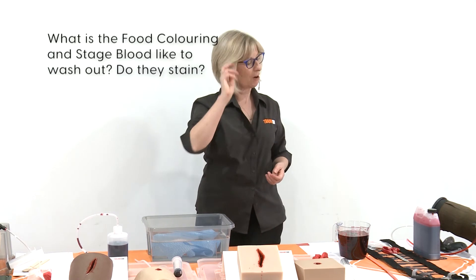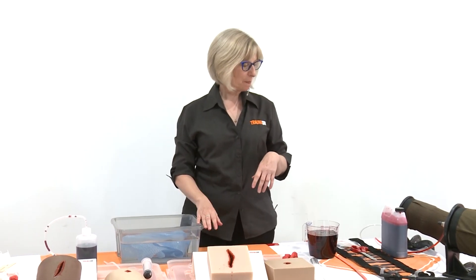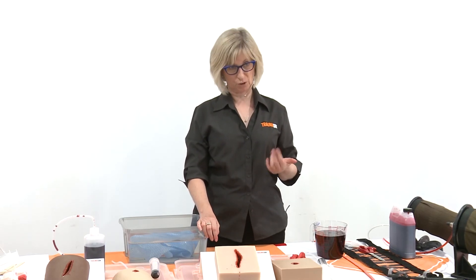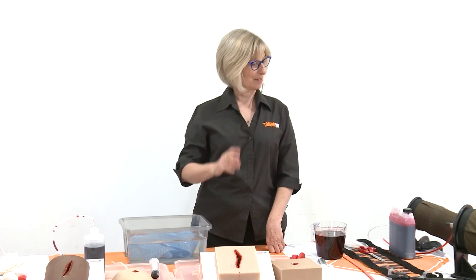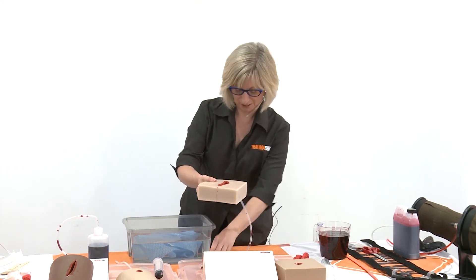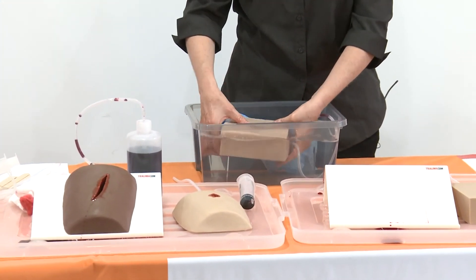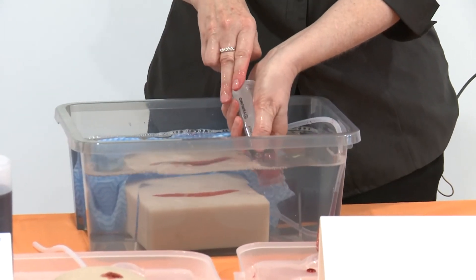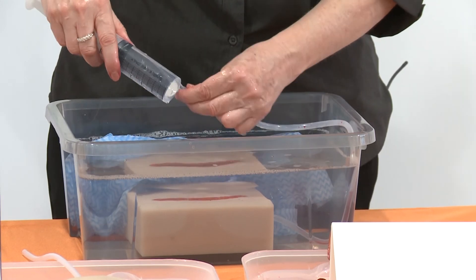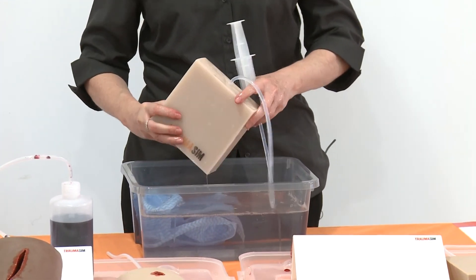The food colouring is not too bad either — I've had no trouble getting it off clothing and I've been soaked at times. I haven't got it into any fine fabrics like silks, but I've washed it out of carpet and clothes and it's not been too bad. If you leave the blood in the tubing it does harden, but it will generally still come out. Sometimes I've had to throw it all in the bag and clean it a couple of days later and it still washes out.